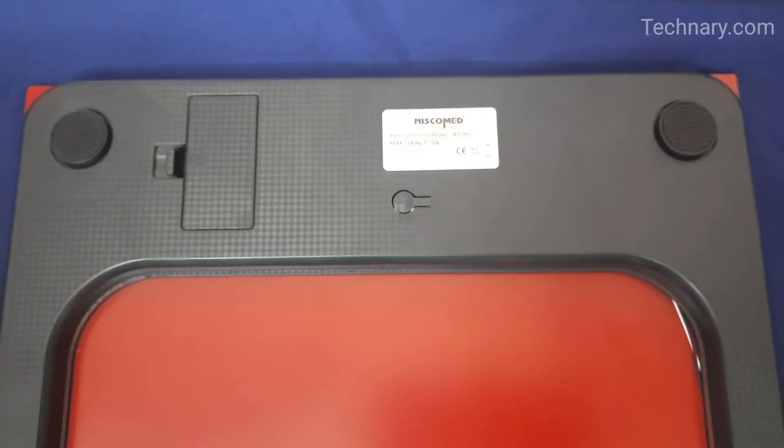There is a foot tap switch. You can set auto zero resetting and auto power off also and a low power and overload indicator is also there.